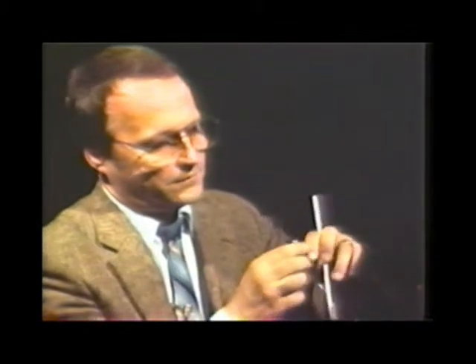We'll now look at the scope and see a typical task we would have for a subject. We might want them to generate five centimeters of water pressure for five seconds. That's what we use as a reasonable goal for normal production. This sweep is moving at one per second, so I'll just put the pressure tube in my mouth and the leak tube and I'll do the task.